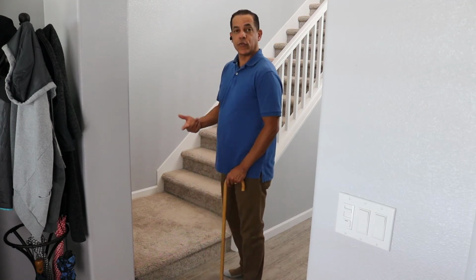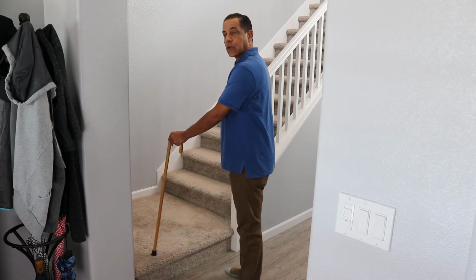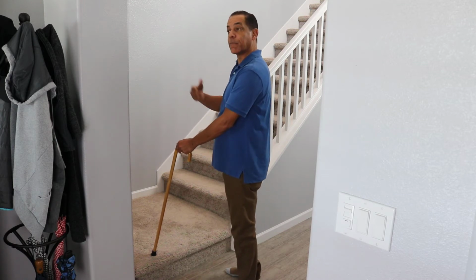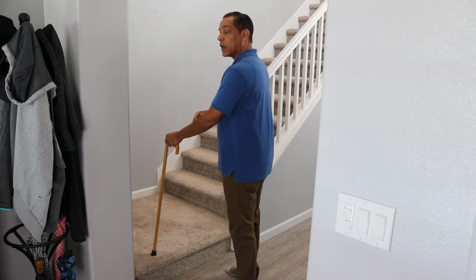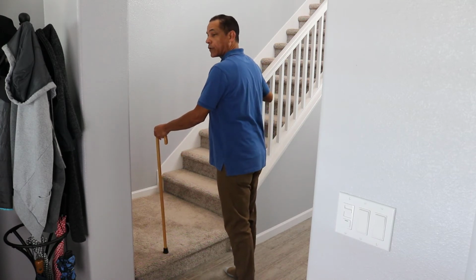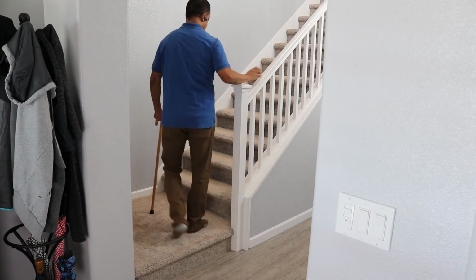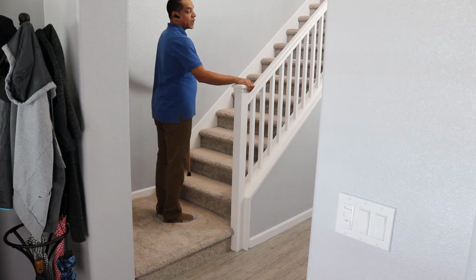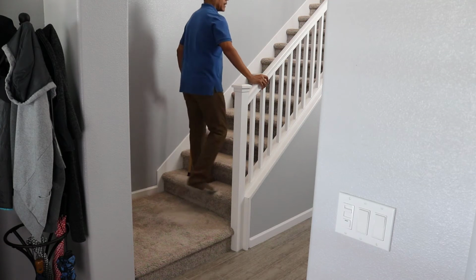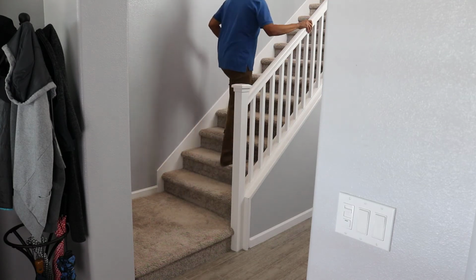What you're going to want to do when you're using the cane on stairs is to bring the cane up first and go up with your good leg first, or your strongest leg, or the leg that does not have as much pain. Let's just assume that my left leg is my best leg. So I put the cane up first, I hold on to the railing, step up with my left leg, bring my right leg up. Again, I would put the cane up on the stair ahead and step up with my left and proceed all the way up the stairs like that.